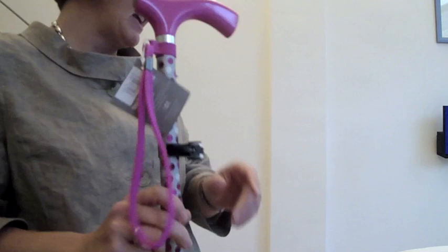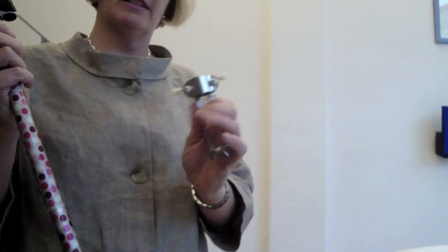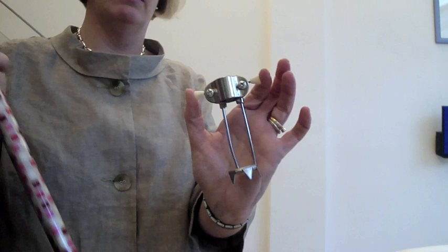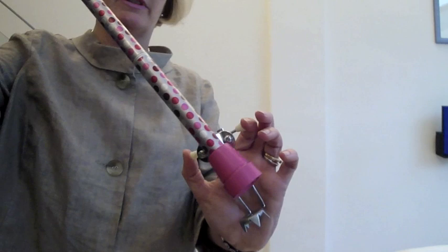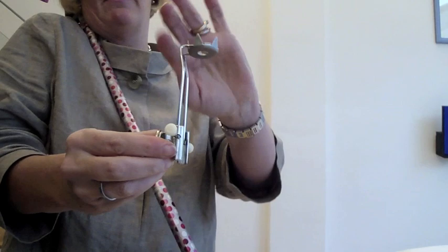We also have the ice grip. The ice grip is a perfect little attachment for icy, wintry conditions, just giving a little bit of reassurance. It comes with two Phillips screws and two more also in the packet, so it will fit any walking stick and a number of crutches as well. You take it apart and screw it onto the bottom of the stick. When you go indoors, you squeeze these two pieces together and flip it up so it doesn't spoil your floor or carpet. Very popular, very clever little gadget.